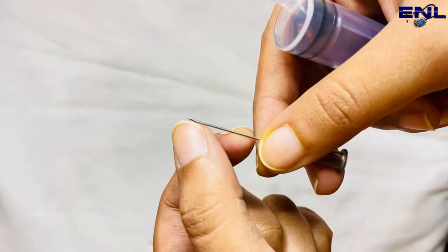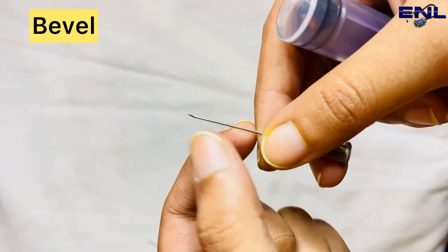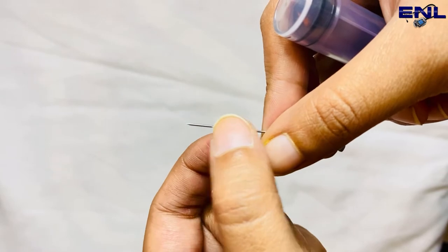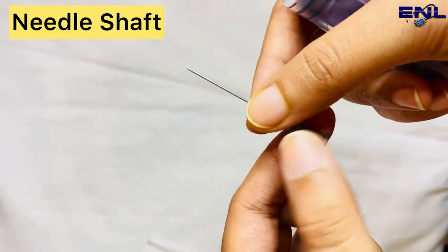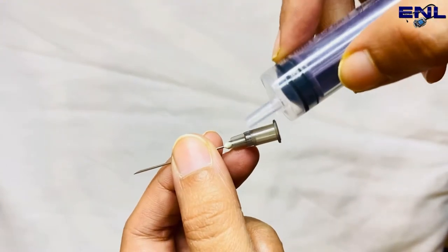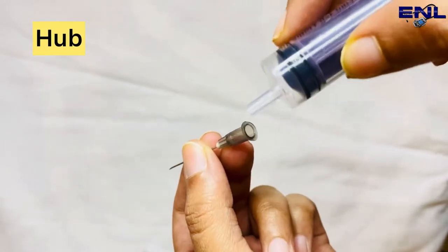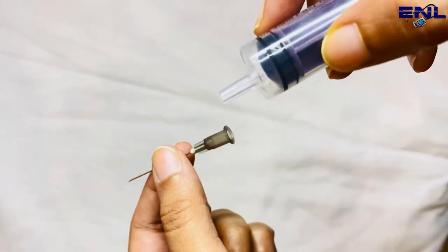We get a slanted part and this is the bevel. And this is the needle shaft. So this is our whole needle. And then this grayish part here is known as the hub.